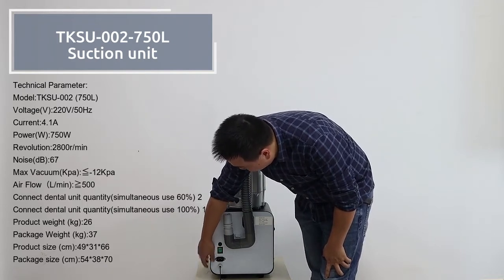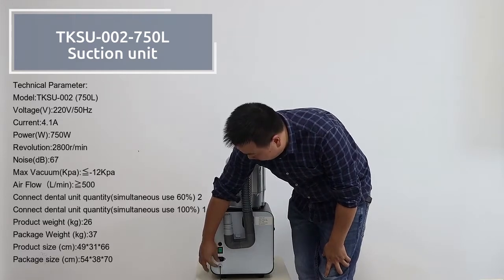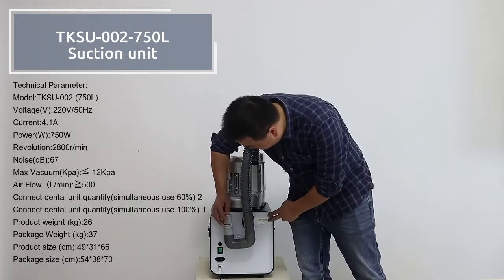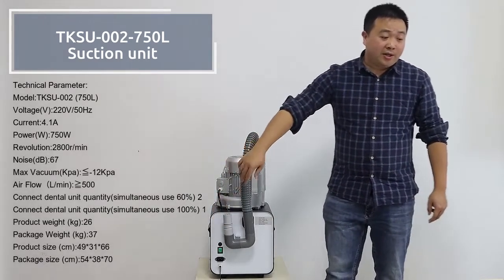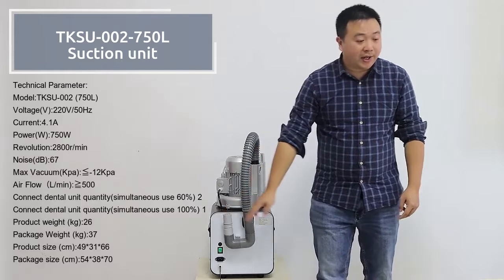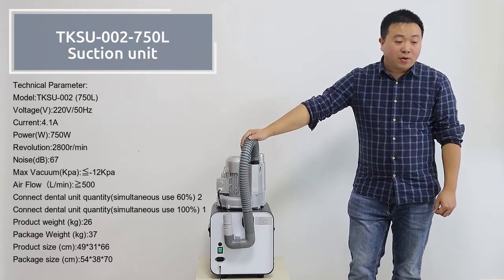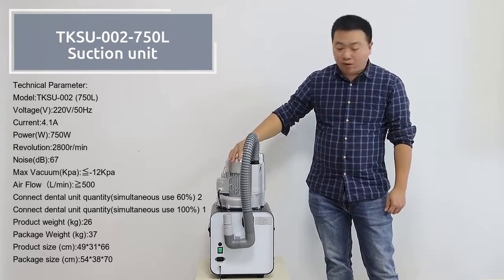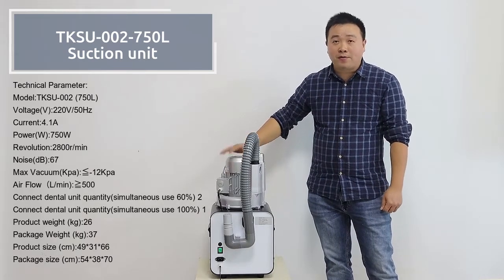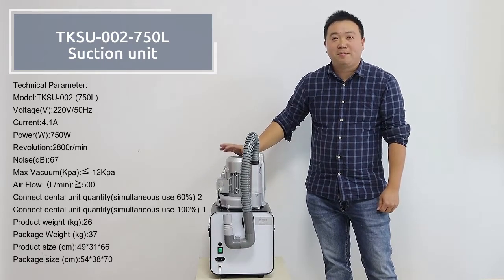Here is the power switch, and also a connector for the electric power pass. This design ensures smooth suction and power, but also ensures inside cooling of the machine so it can run for a long time. If you need any more information, please contact us. Thank you.